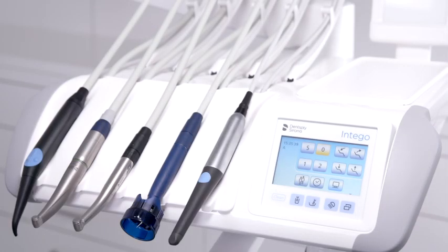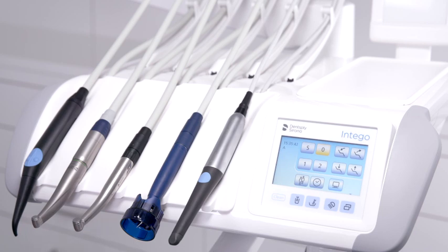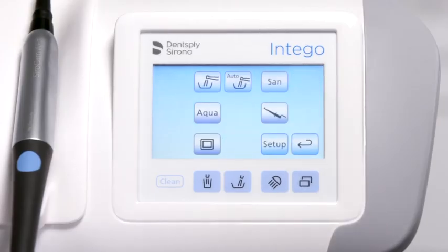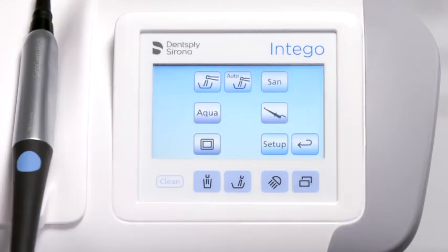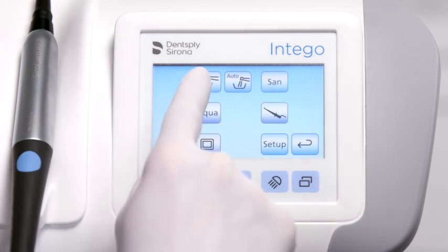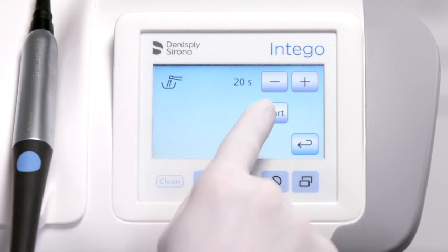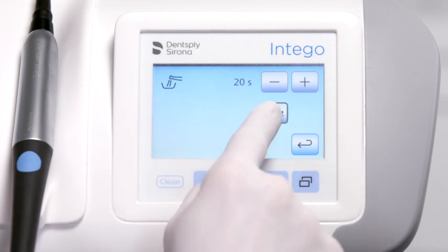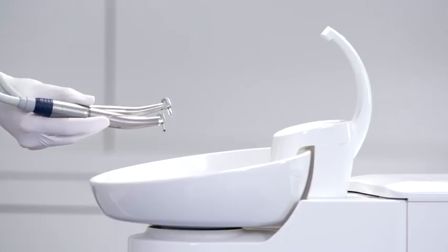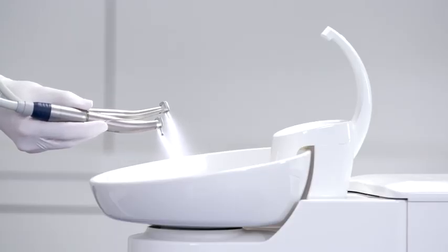Flush the instruments using the purge function after each patient. Press the submenu button in the start screen to open the hygiene programs. Activate the purge function by pressing the purge button. Press start and hold the instruments over the cuspidor. The instruments will be flushed for the duration of the set time.